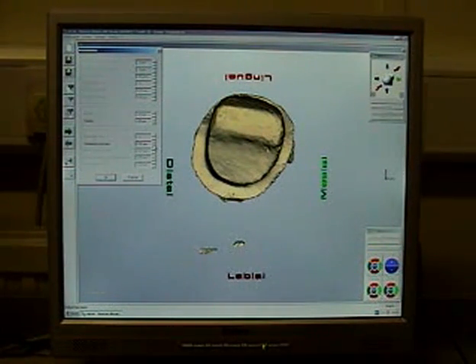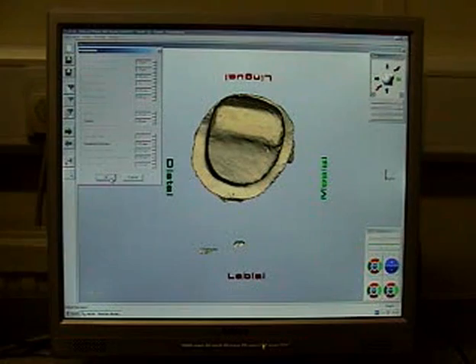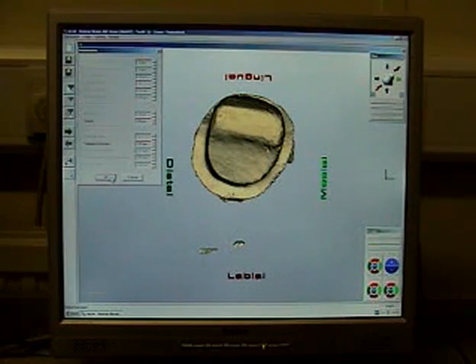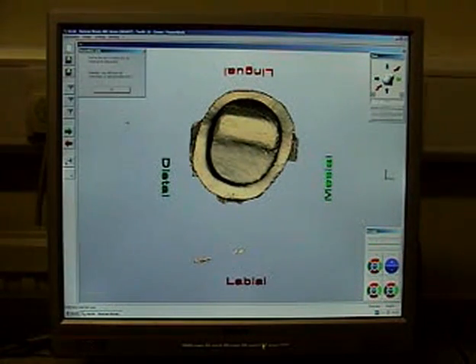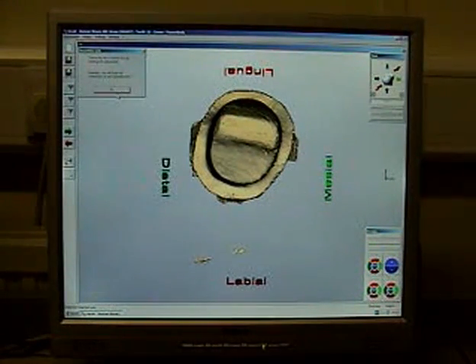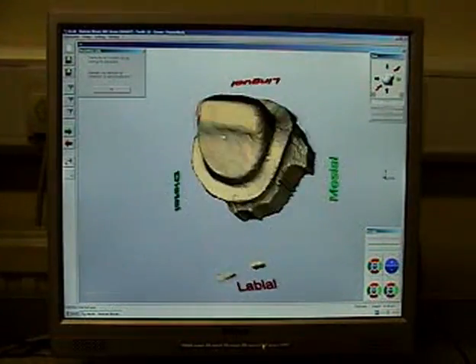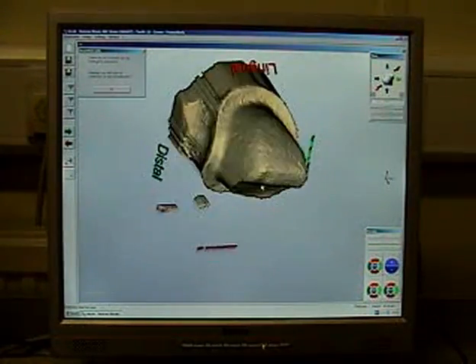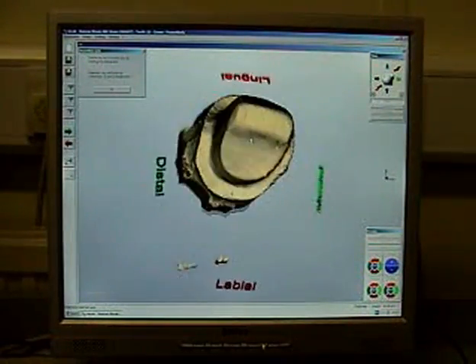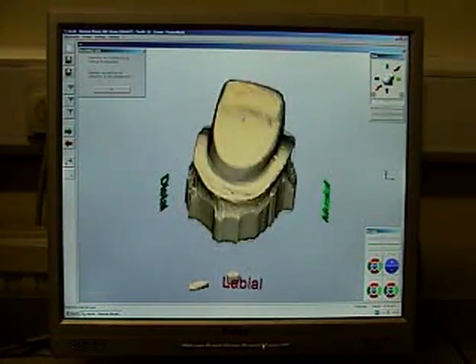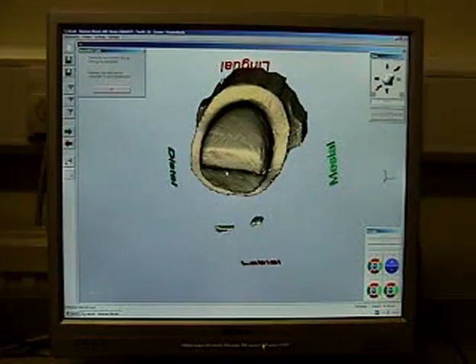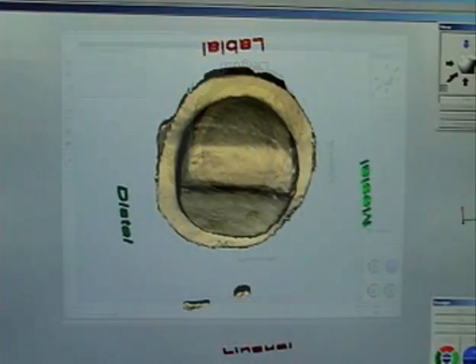You can see on the screen that it's labelled the directions of the coping. So you can see lingual, labial, distal and mesial. And that's why it's quite important to get everything lined up on the scanner before you start. You can fix it in the software later on but it's quite fiddly.